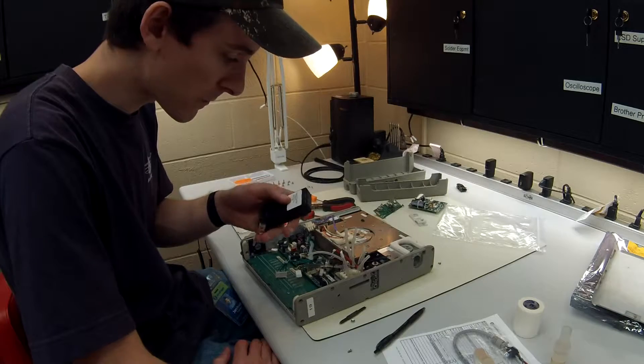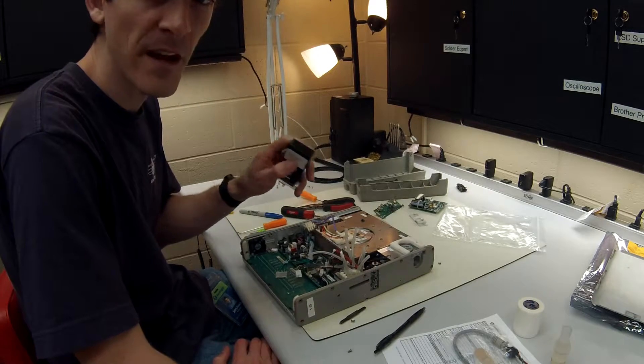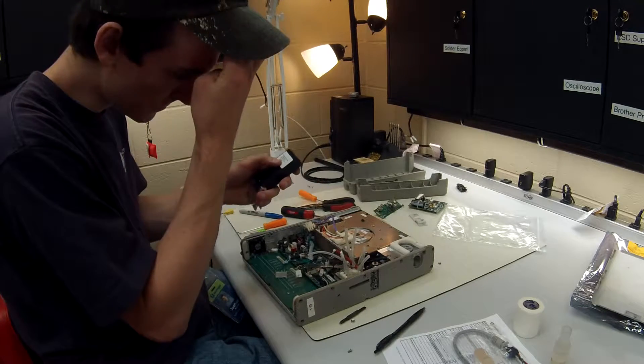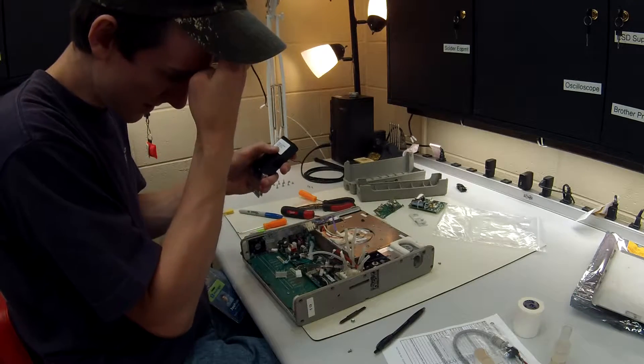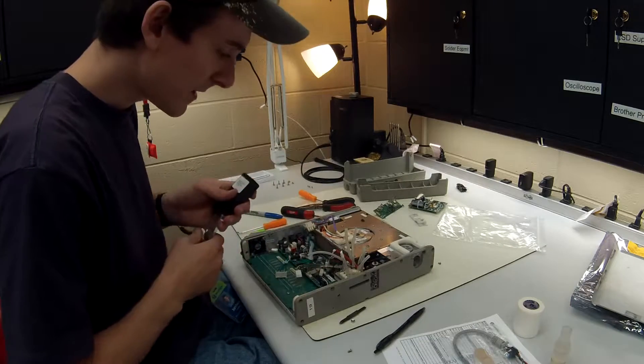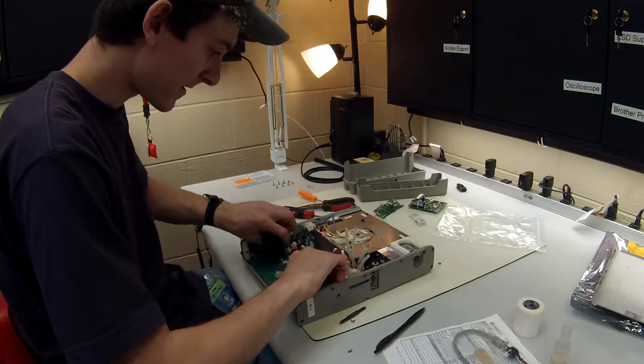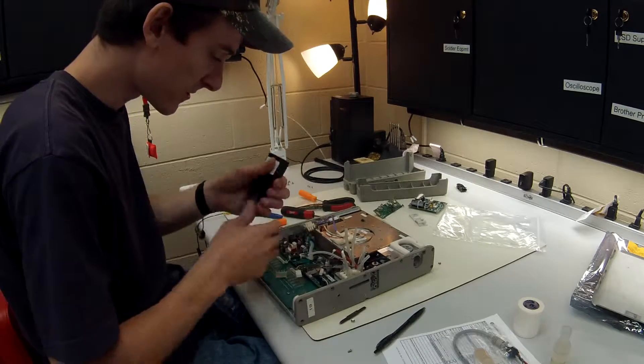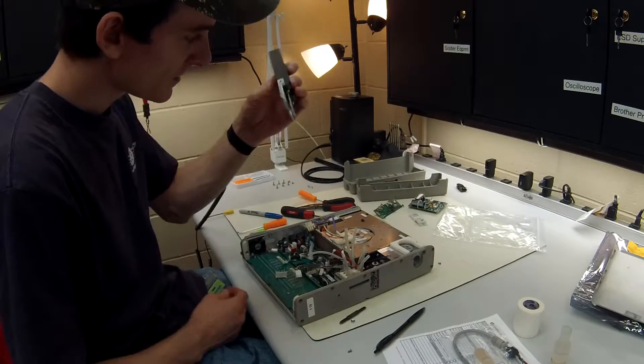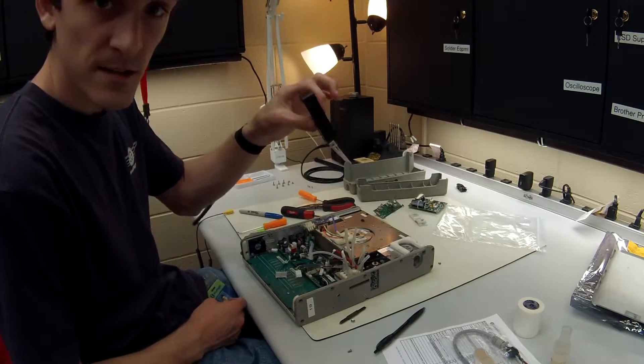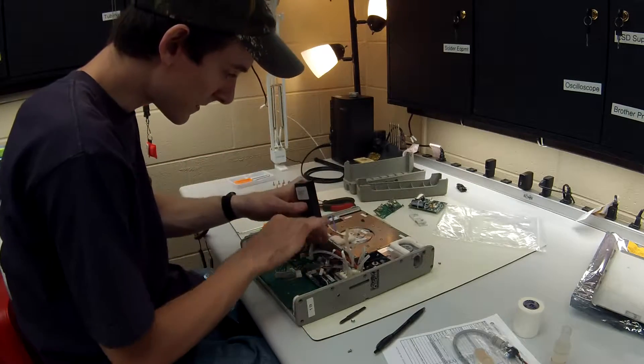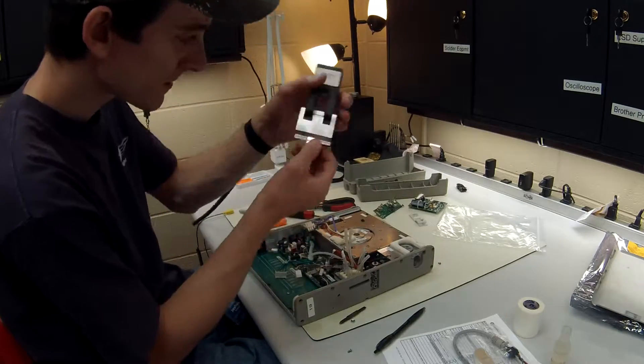Now this actually will remove the power board easily without having to try and jiggle it back and forth. It just looks like this. All you have to do is stick it in position.